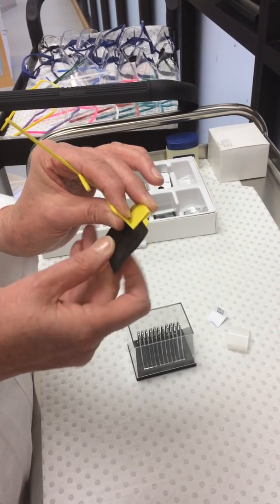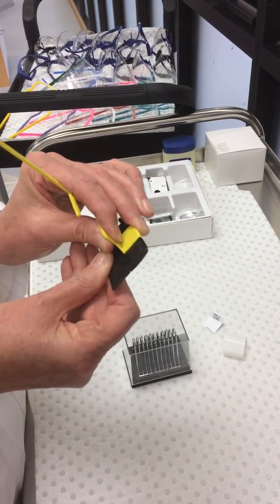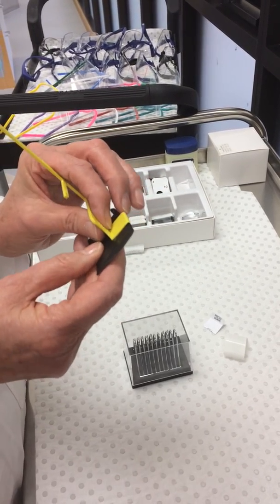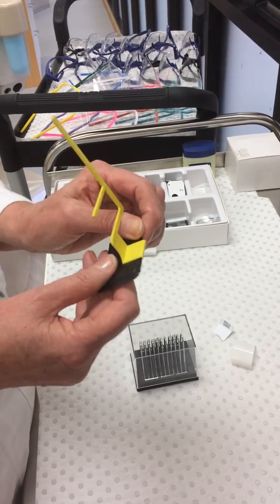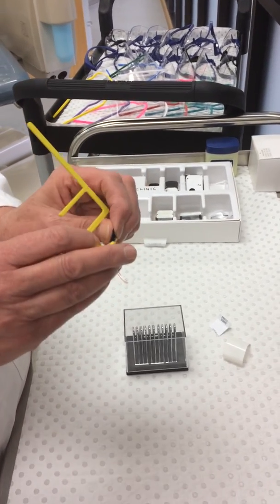You pull it away to allow you to slide the phosphor plate in, but then don't pull it away too aggressively because then you can break it.